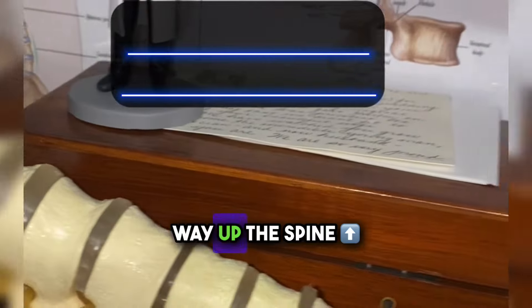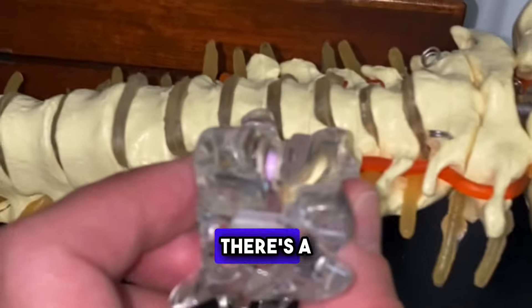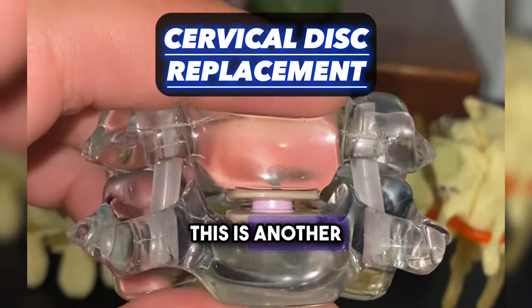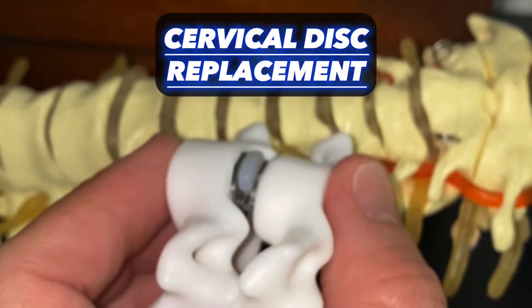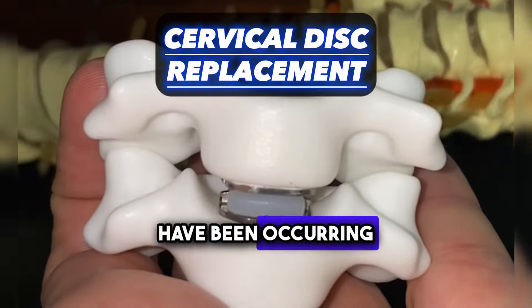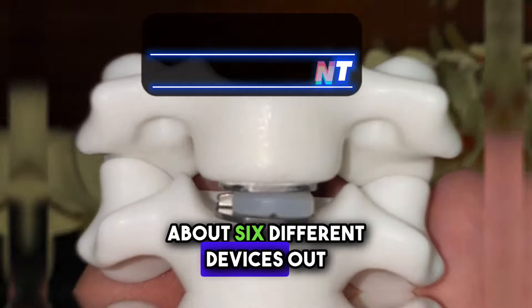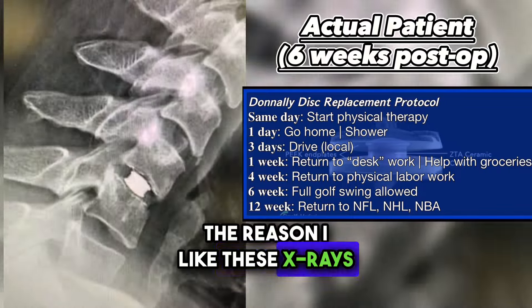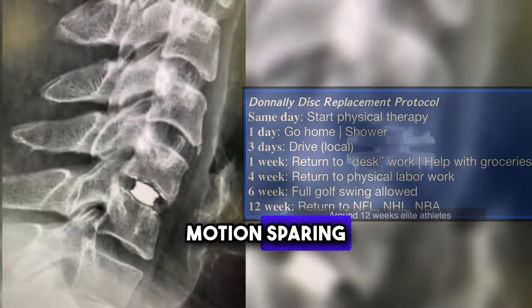Working our way up the spine towards the neck, there are two types of implants. There's a cervical disc replacement, or CDR. This is another motion-sparing device that's used for disc herniations that fail non-operative treatment. Disc replacements in America have been occurring since the early 2000s, and there are about six different devices on the market. This is an actual patient of mine — these x-rays show the flexion and extension from a motion-sparing disc replacement.